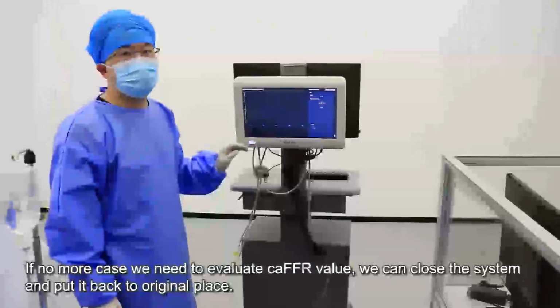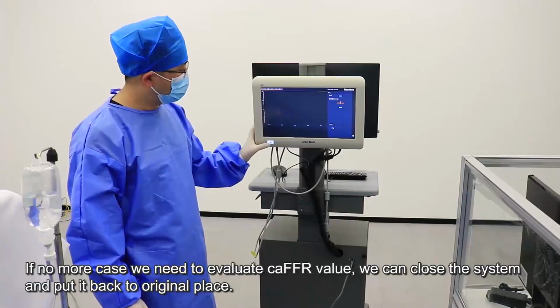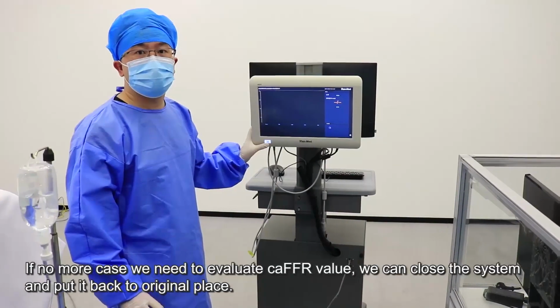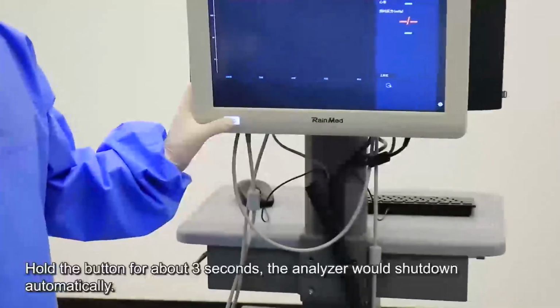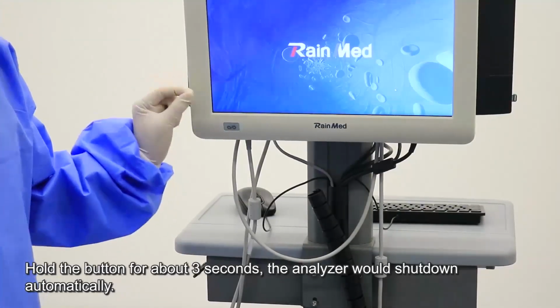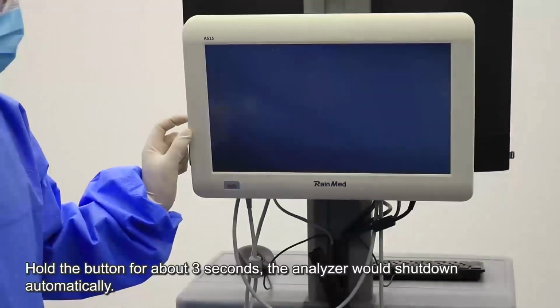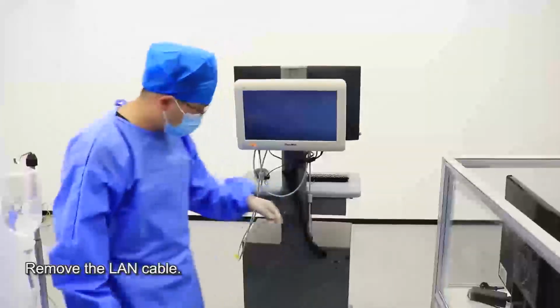There is no more case we need to evaluate the CFFR value. So we can close the system and put it back to the original place. Hold the button for about 3 seconds. Okay, now the analyzer will shut down automatically. And then we remove the internet cable.